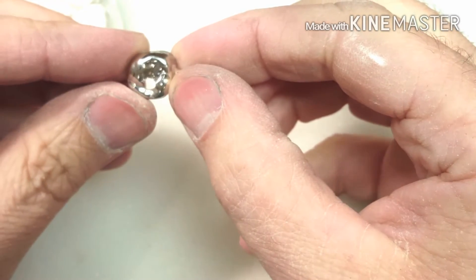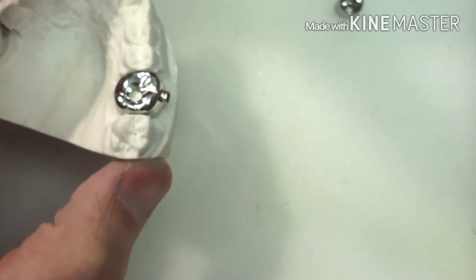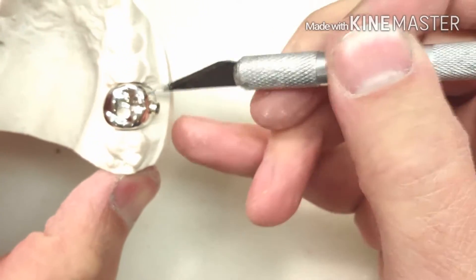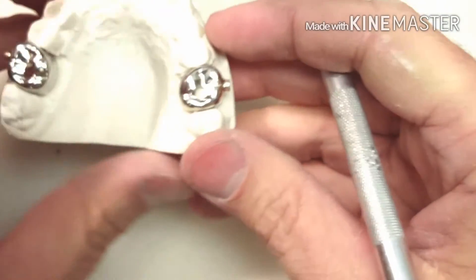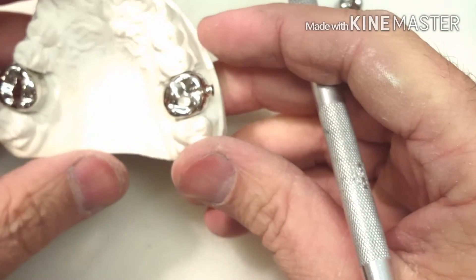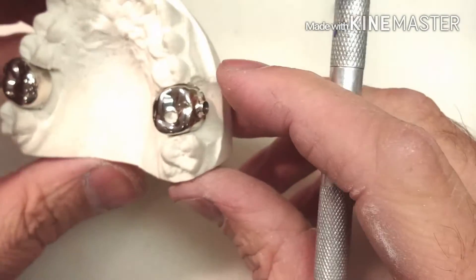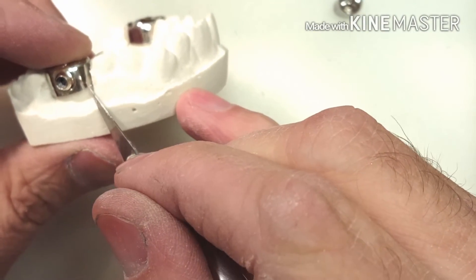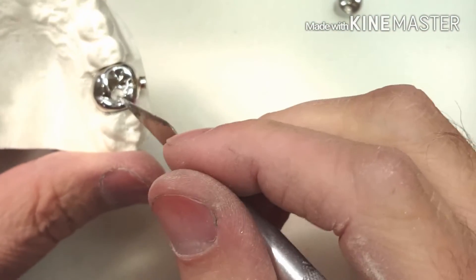And that's a prepped crown. What that does is the doctor can grab the crown from here and here and rip it. When they go to rip it across, they catch that point and it comes right off. So that's the preparation of a stainless steel crown on a Herbst appliance with a mesial cut slit for removal and a circular cut in the crown.